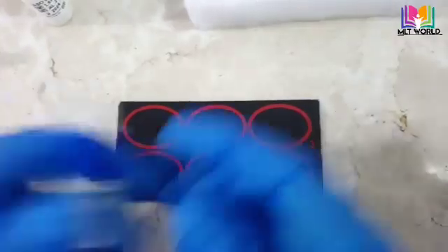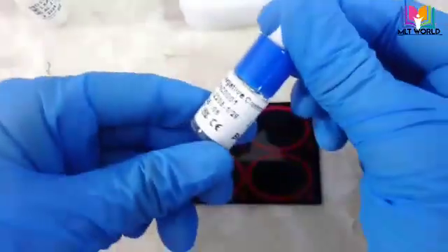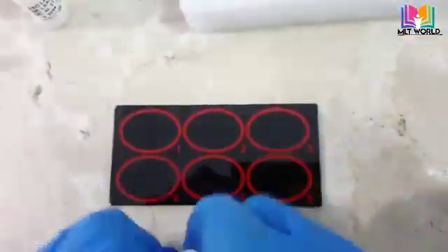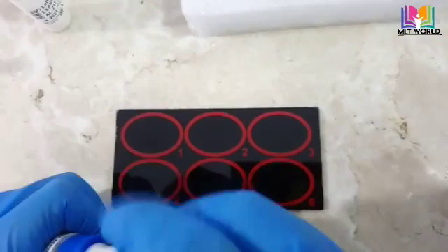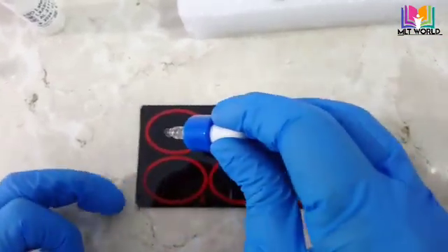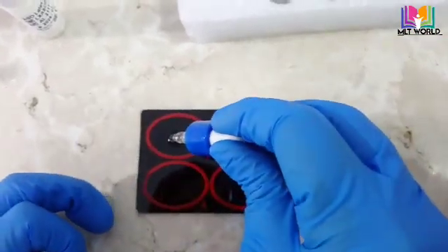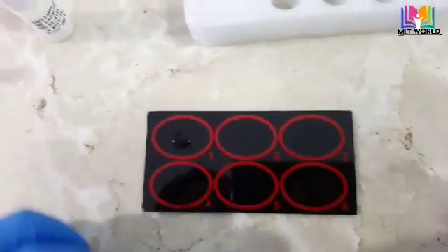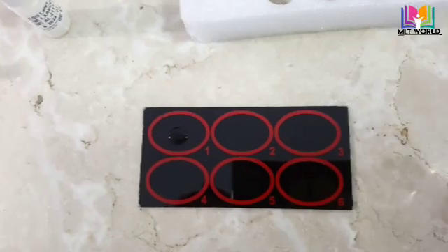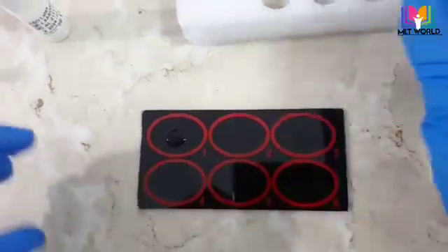Welcome back. Today in this video I will show you how to perform the ASO test rapid test. I will show you the qualitative method, and the quantitative method I will show in another video.